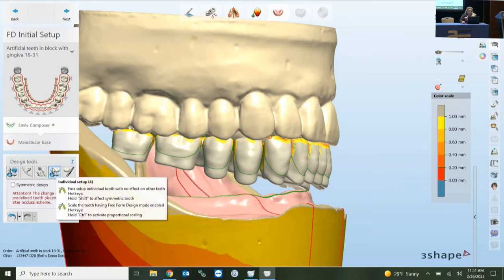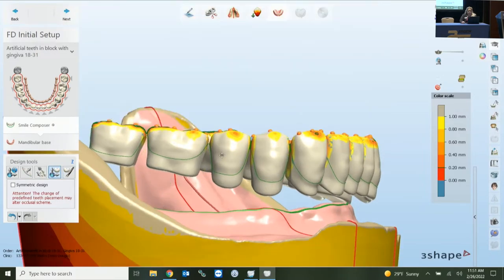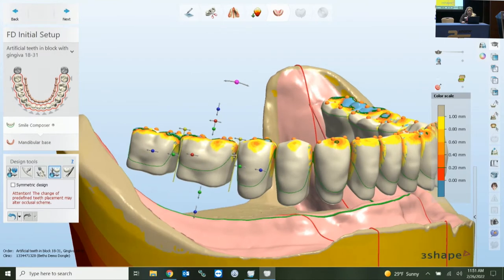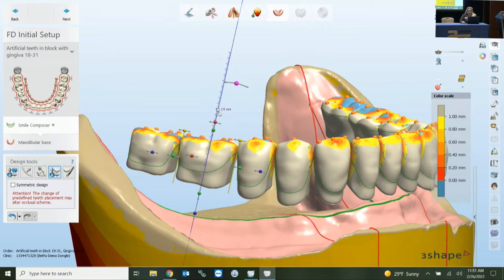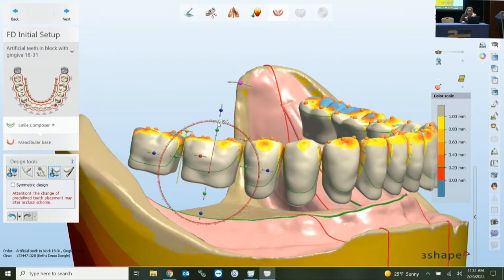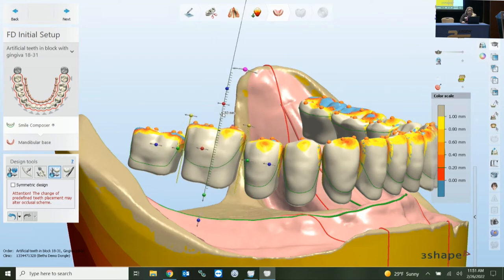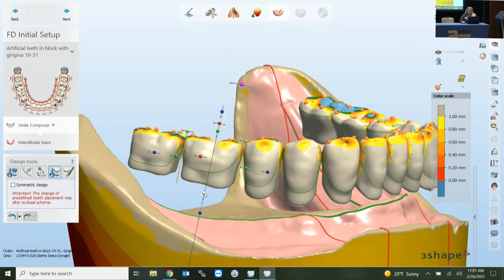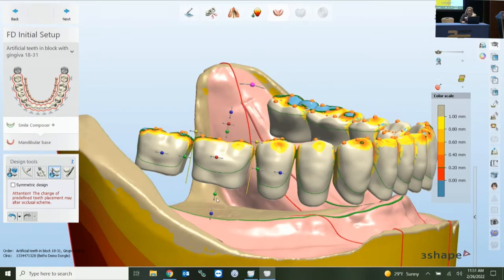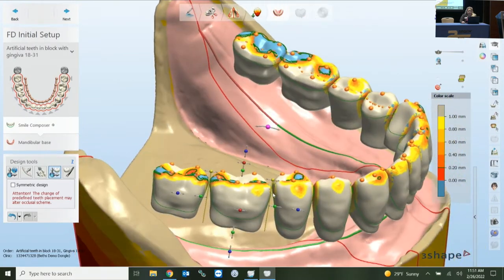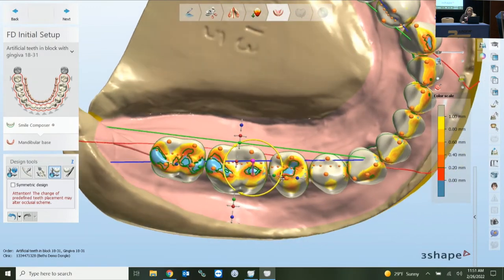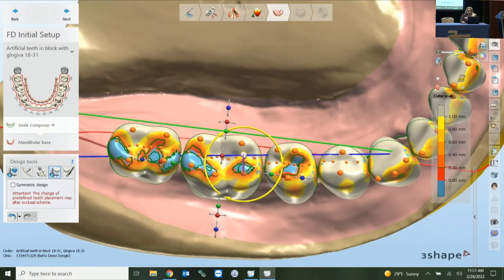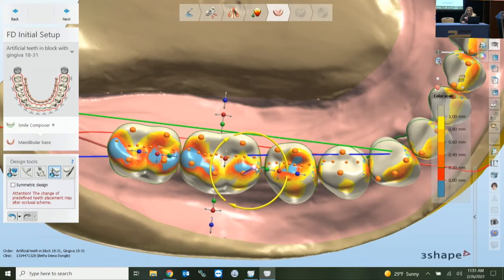In the individual setup, you have several dots. The blue dot performs a static movement of your tooth, the red dot is always rotation, the green dot increases occlusally — and these appear on all sides: mesial, distal, and the gingival side. From an occlusal view, there's a joystick giving full rotation. If you right-click on the second molar, you have options — including removing this second molar or removing all second molars.